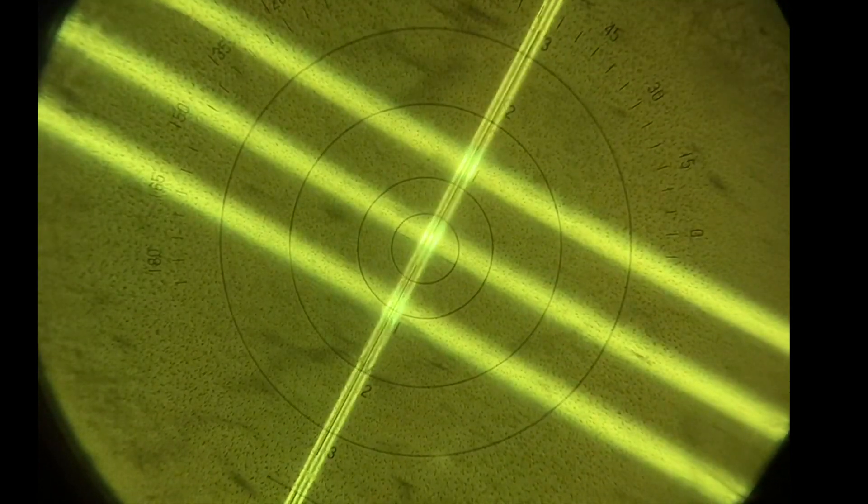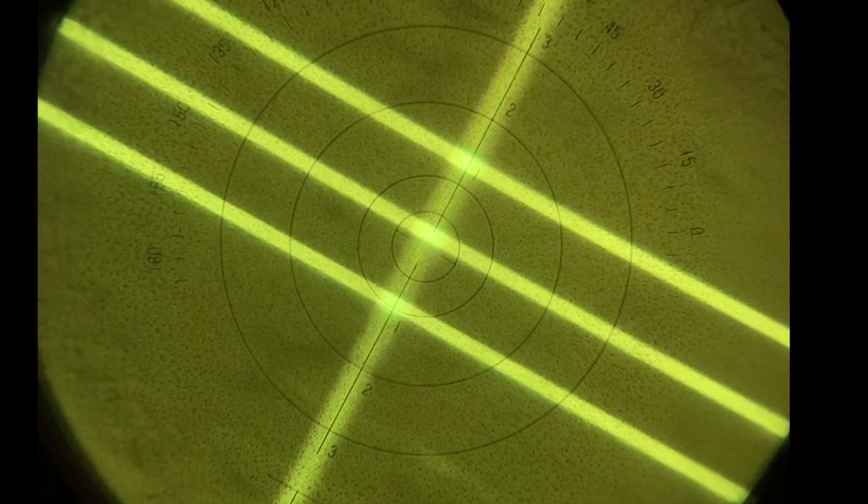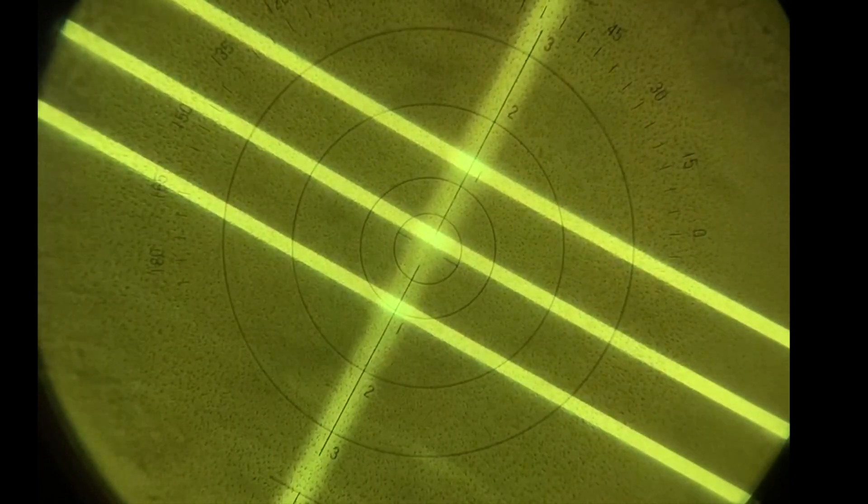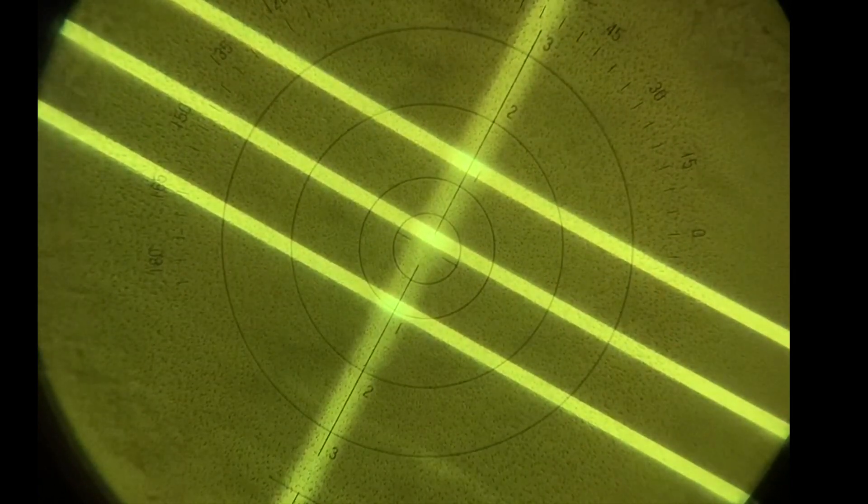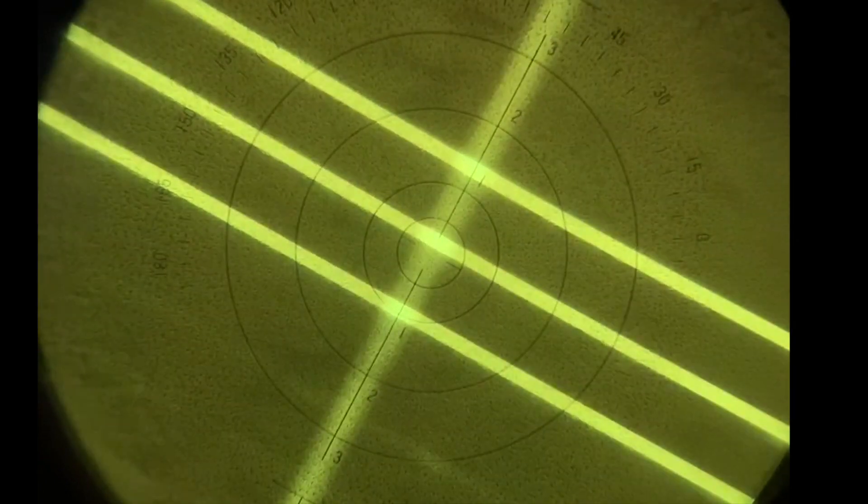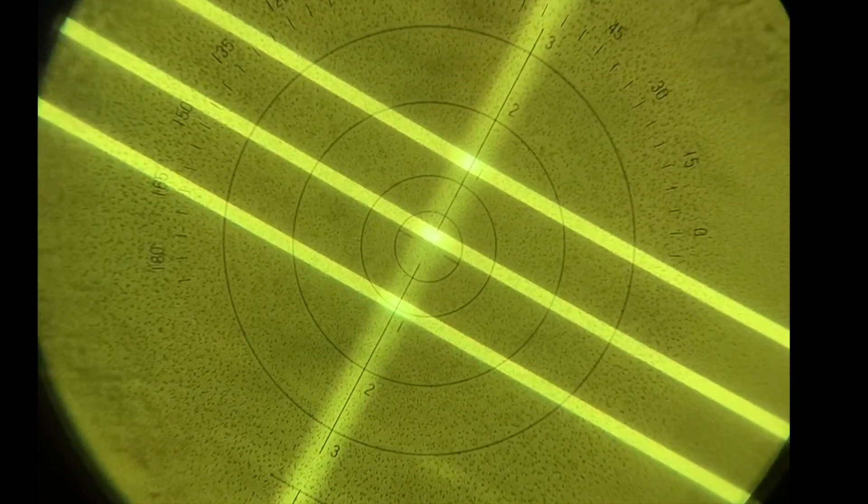By focusing our sphere lines first and ensuring that we are adding plus power to focus our cylinder lines, we can ensure that we are reading the prescription in plus cylinder.